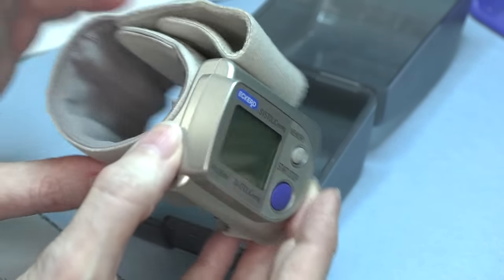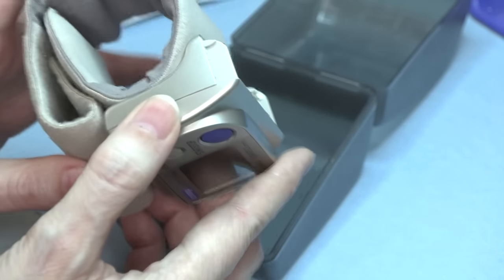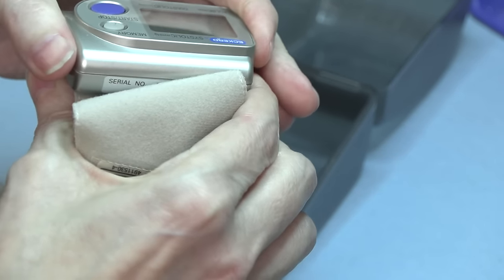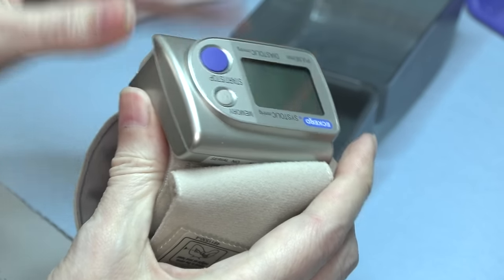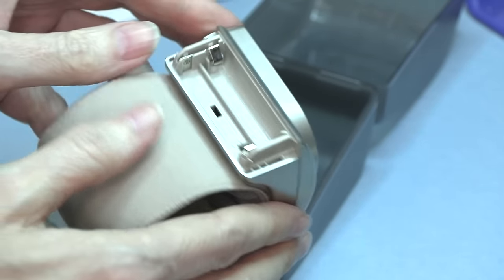I wanted to get it apart, and I looked it over, and there aren't any fasteners, so it's probably snapped together. The top, it feels like it kind of has that feel of a part that's just kind of snapped on the top, so I think if I get under there, I might be able to just pop it off.